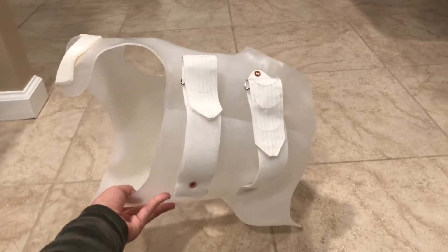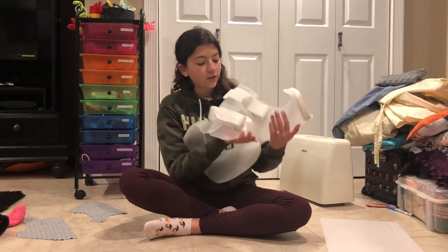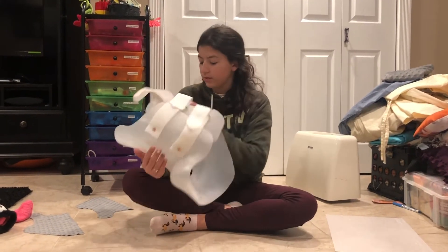Okay, so this is my brace. It's pretty large — I can't really fit it in the frame. This is the armpit area where your armpit goes, and we're going to be covering this with a nice fabric. So this is my brace — it's like the lightest pink and I think it's super cute.